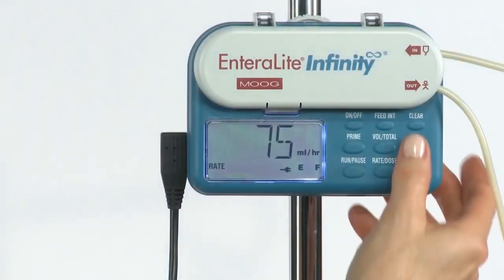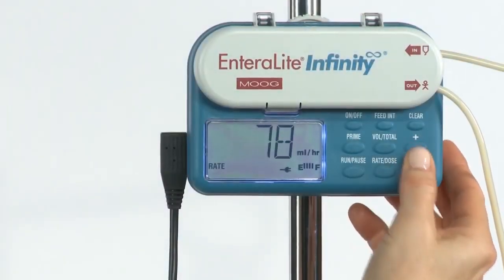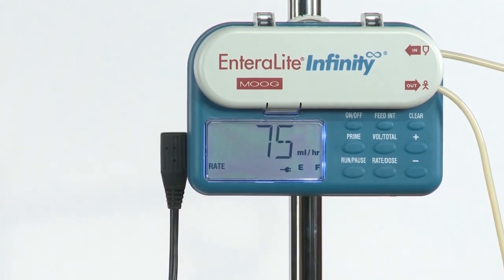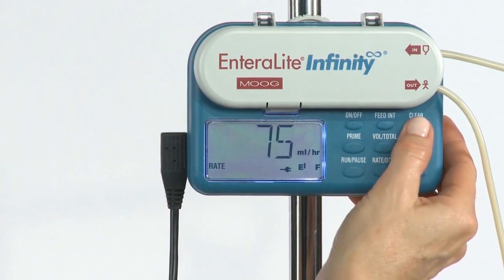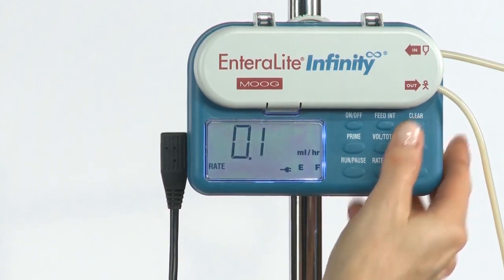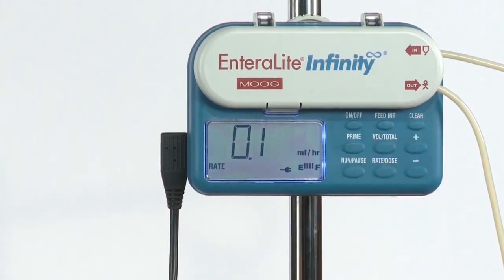To change the rate, press the plus or minus key. If the clear button in the upper right hand corner is pressed, the pump will clear to the lowest possible value, which is 0.1 milliliter.